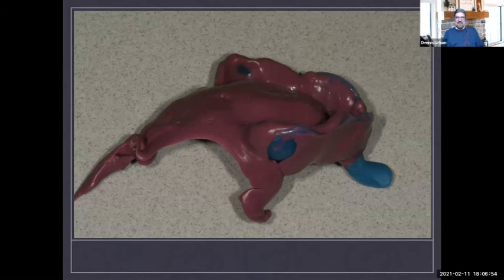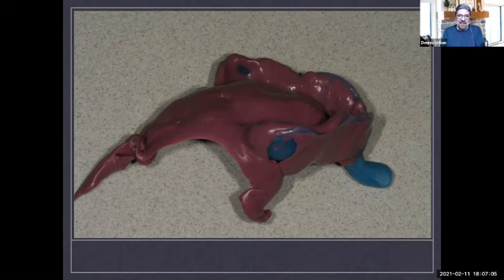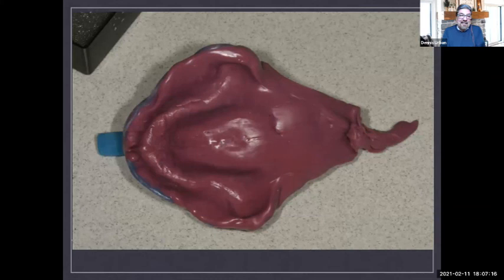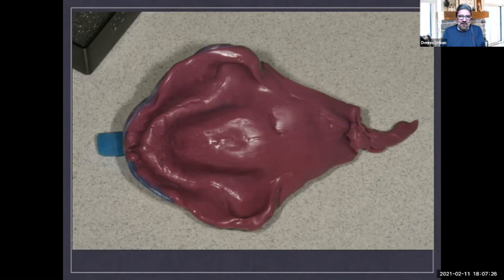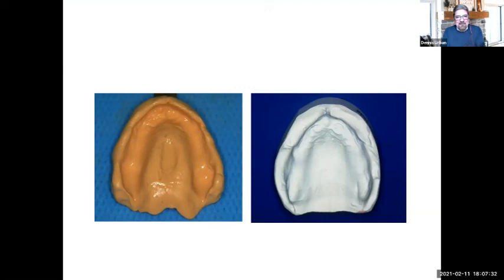This is an actual impression I got in the laboratory where the material went all the way down the patient's throat — that poor patient was laid back in the chair. And the anterior region was missing — it wasn't border molded after all that trouble. You get overextension of the trays and excess material going down the patient's throat, which is not good. In contrast, this is a nice impression — captured all the anatomical landmarks with nice full borders. This is going to work out great.